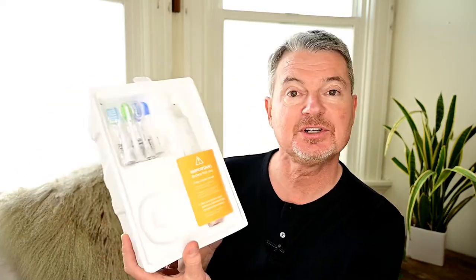First thing I see is a little welcome card. I'm a guy, so I don't read instructions, but I will in this case. It says make sure your handle is up to date by following these easy steps — it probably needs a firmware update already. We've got a little recycled material in here. Important before first use: fully charge the handle. Most toothbrushes come fully charged, and when you open a brush you probably want to test it right away. I bet it does have a charge — and it does. Good.